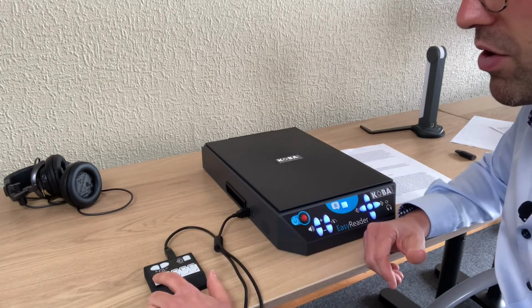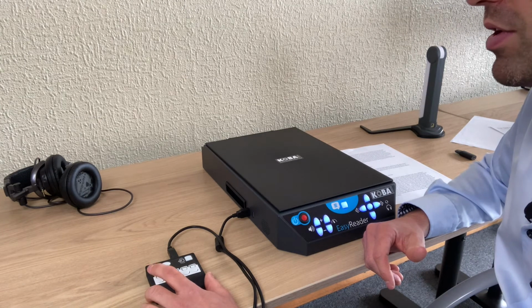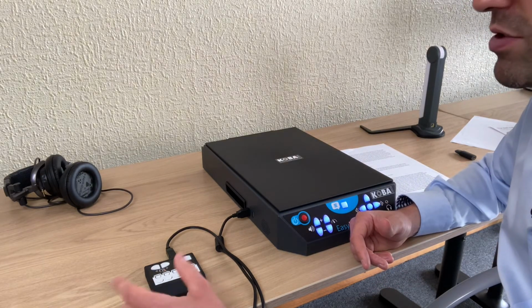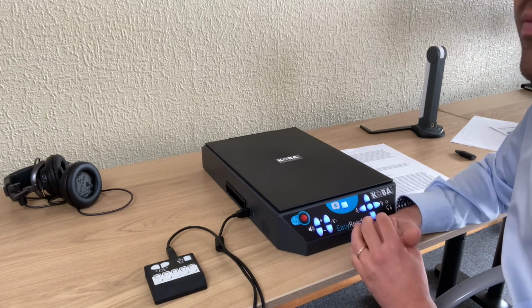That's quite easy. Over here, the round buttons each stand for a position on the hard disk. So when I press long, it will save. When I press short, it will open the text on the hard disk. So I press long over here. Save text on position 1 on hard disk.